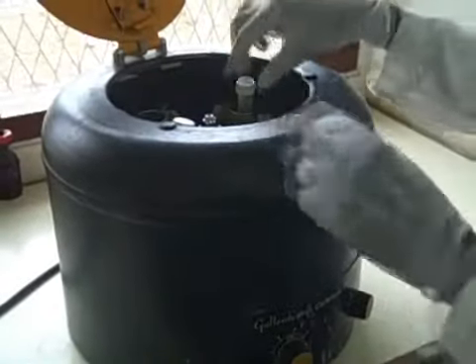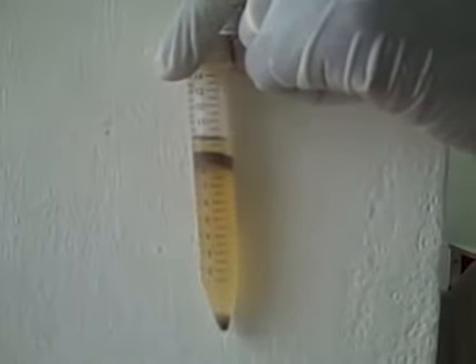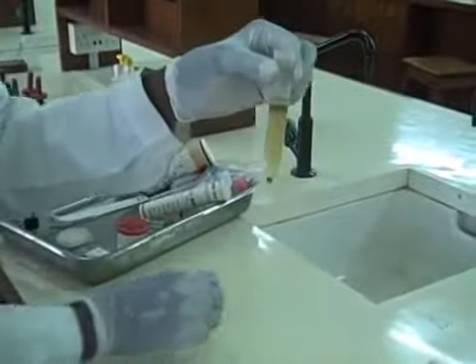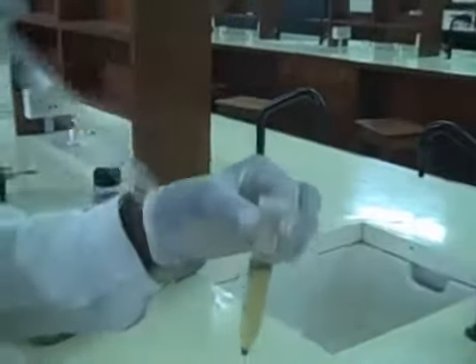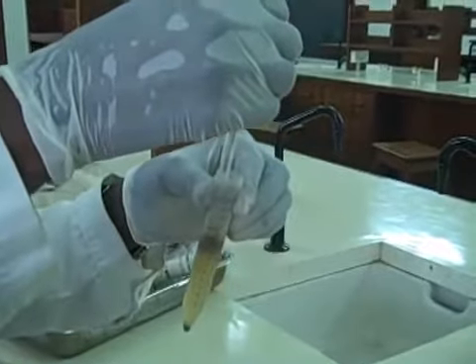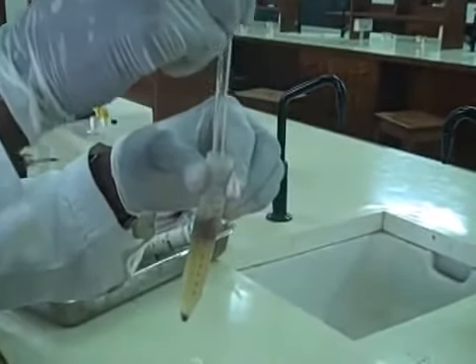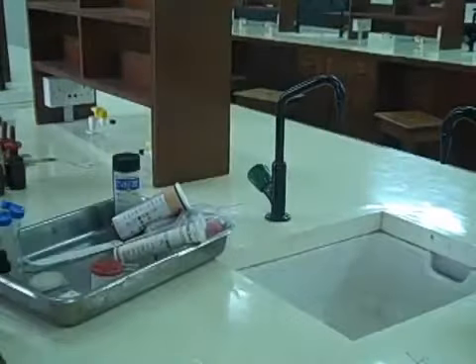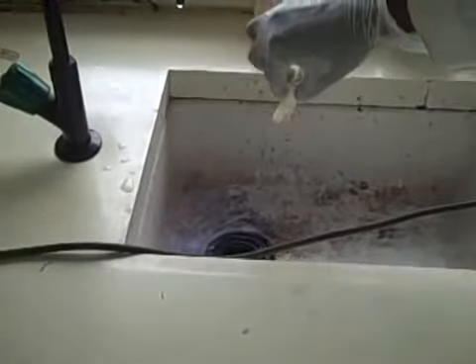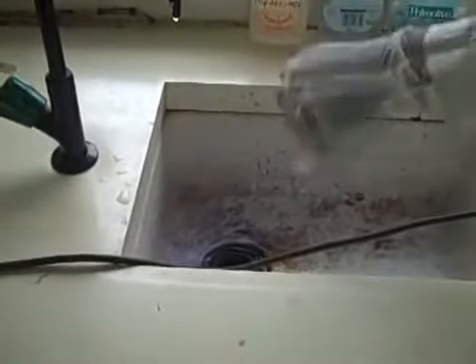Okay, take out the centrifuge tube and you will see 4 layers. The first layer is the ether layer, the debris layer, which is the insoluble part, and then the Formol saline layer, and then the sediment, which contains the parasite. Break through the debris layer and discard the first 3 layers under the tap water, which had already been treated with formalin.